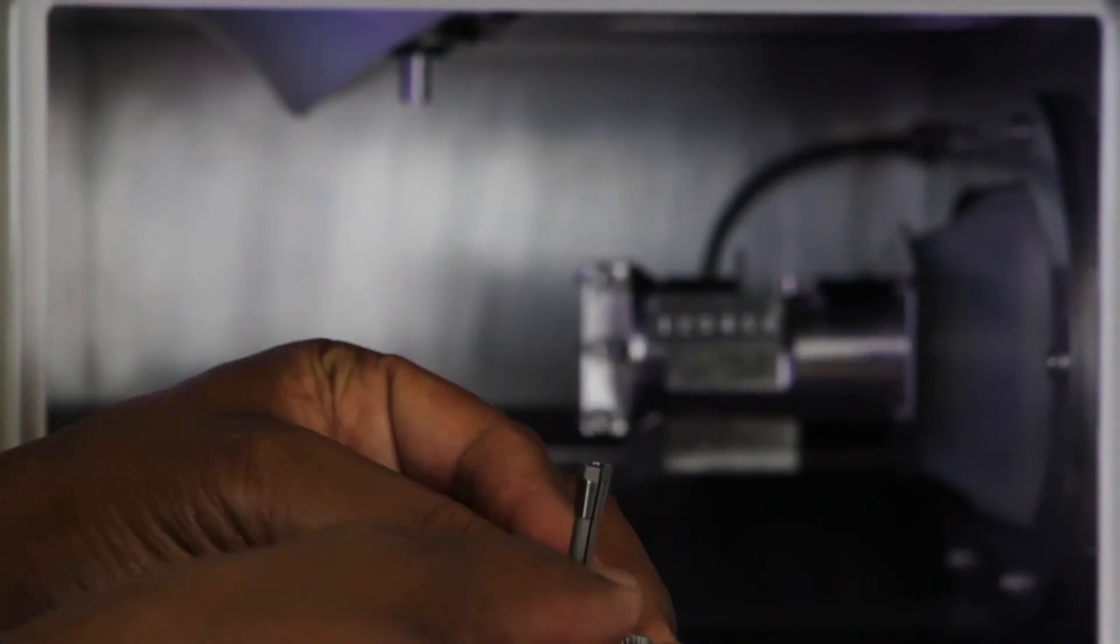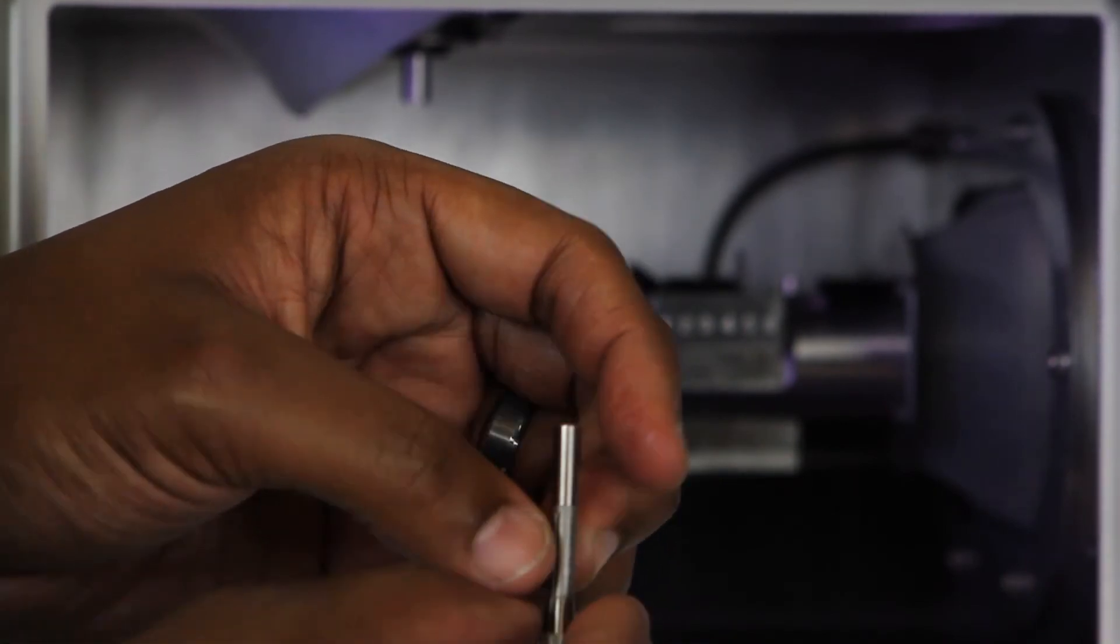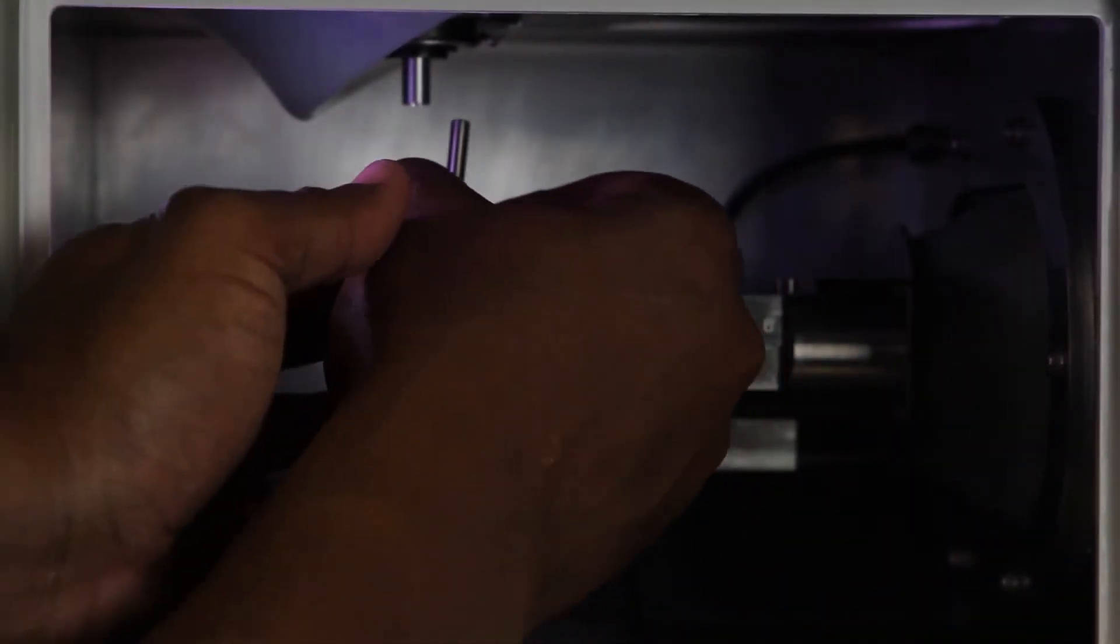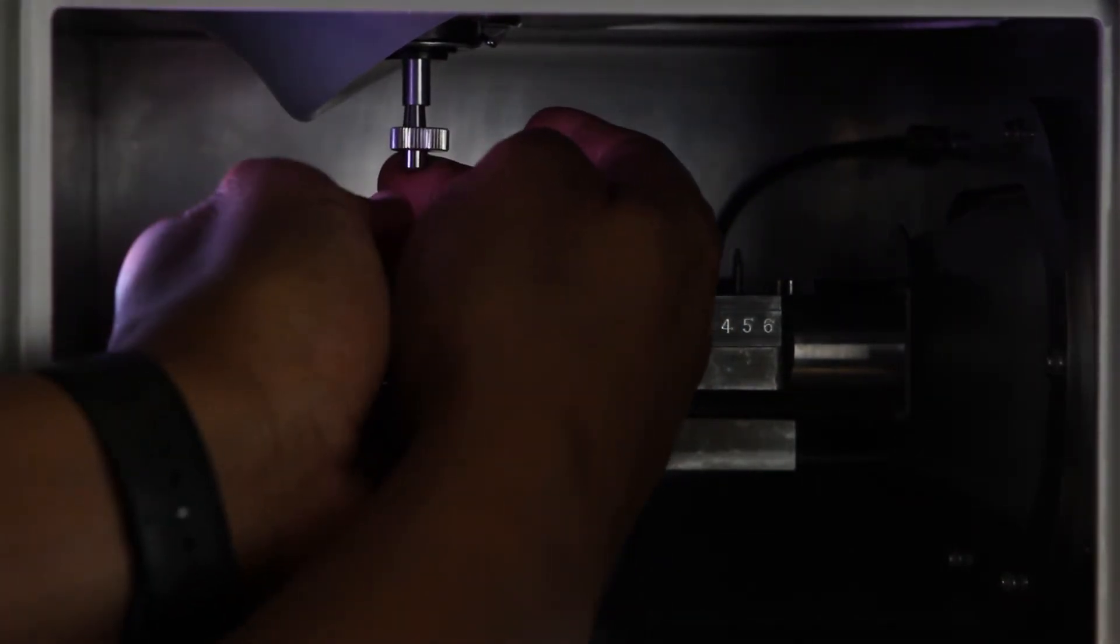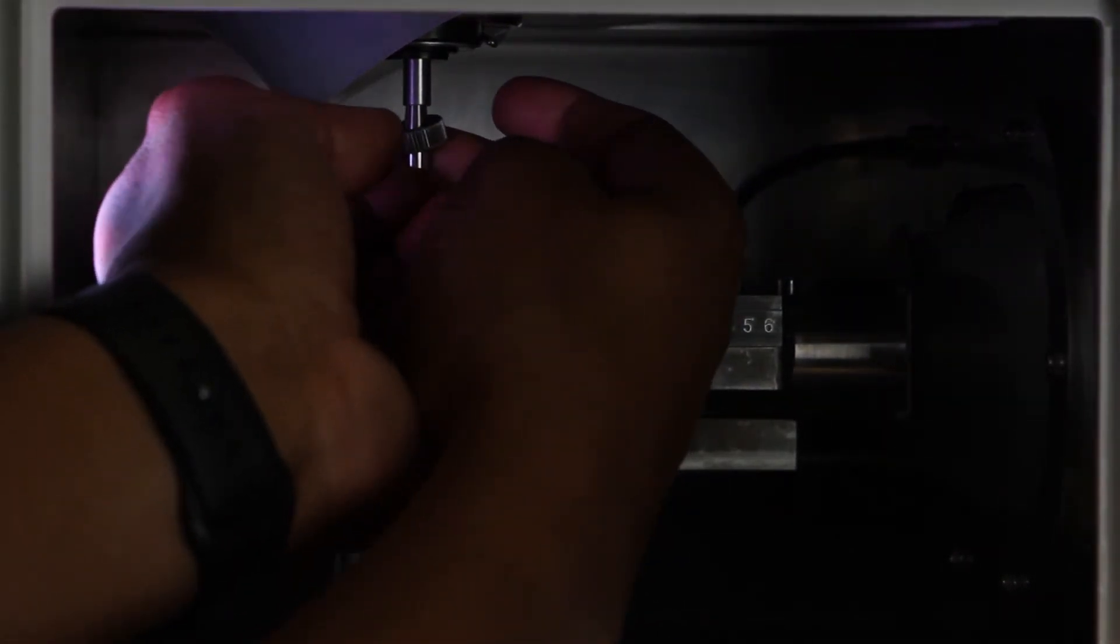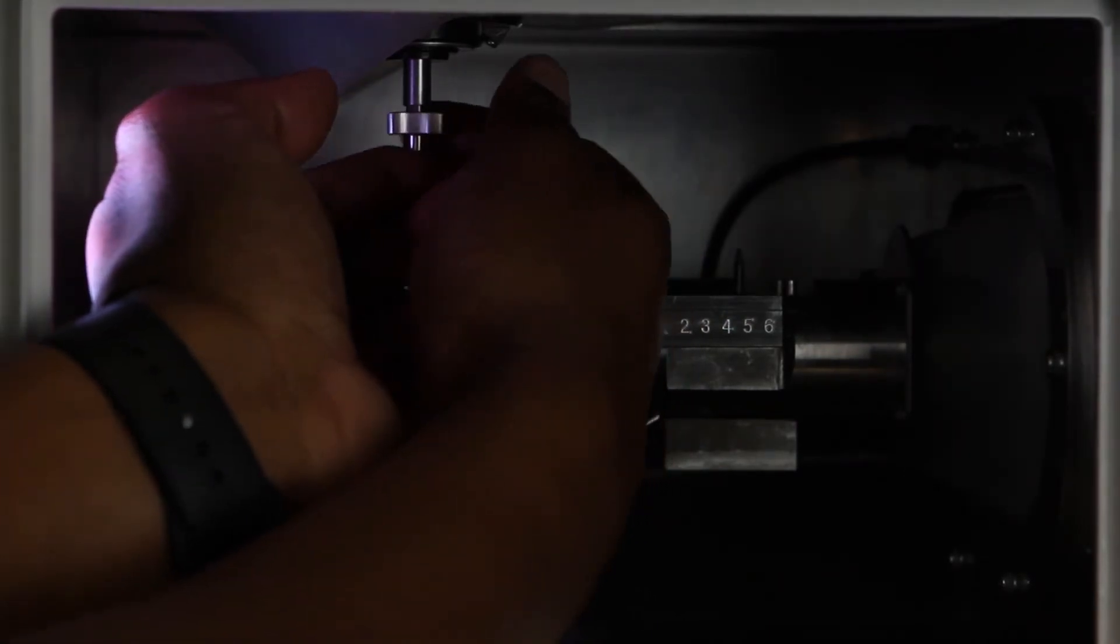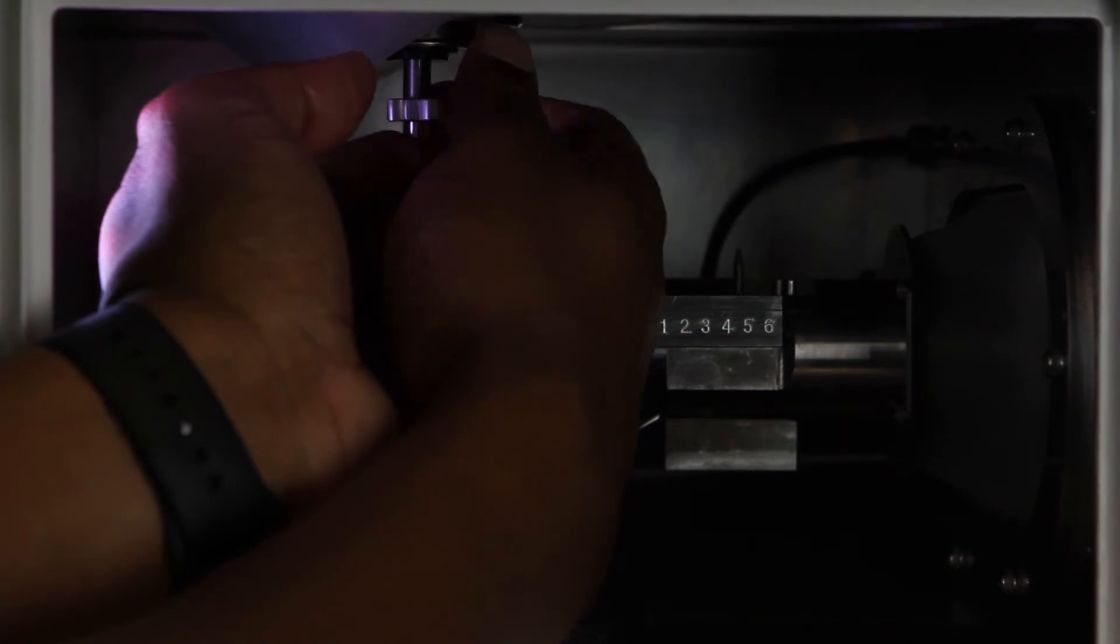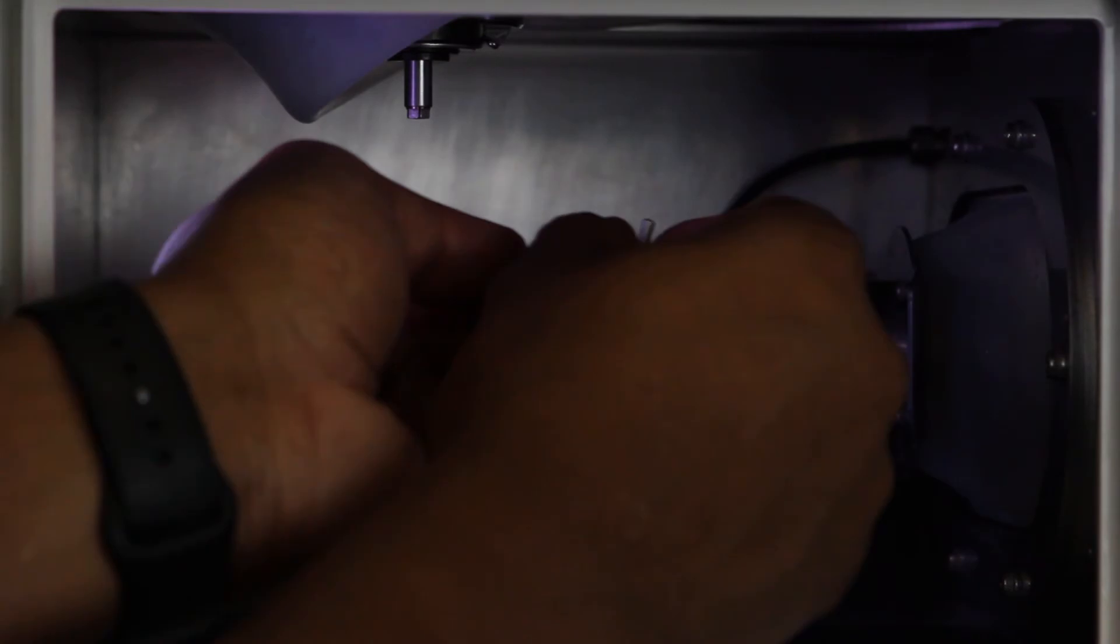Next, reinsert the collet tap and replacement jig into the collet. Place the collet back into the spindle head, placing a finger firmly on the bottom of the collet tap. Use your other hand to turn the collet replacement jig counter-clockwise or to the left until the collet becomes fixed to the spindle head. Remove the collet tap and replacement jig from the collet.